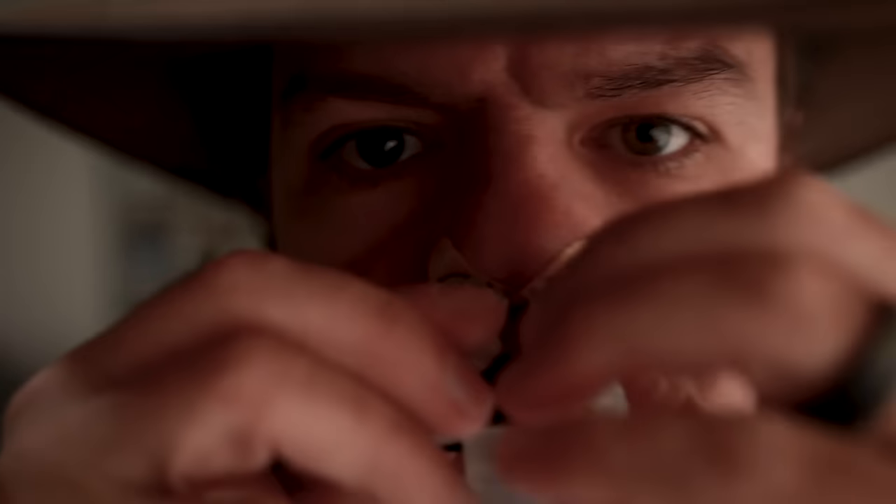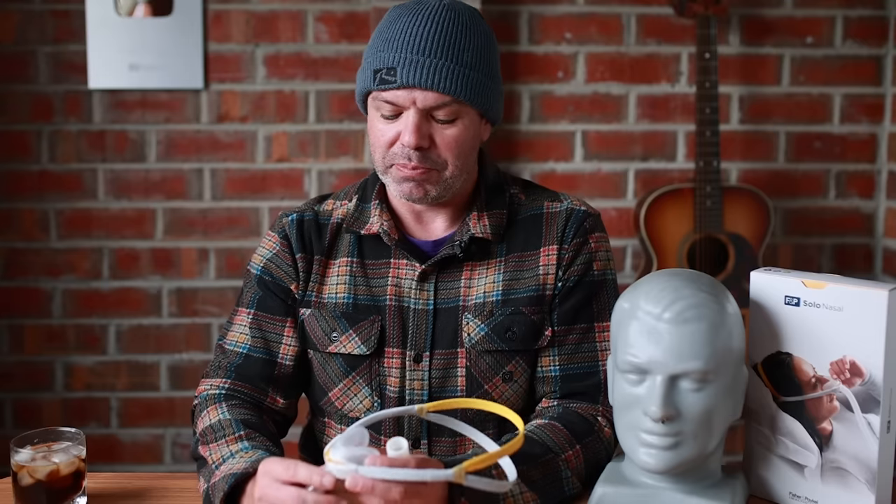The Bleep Eclipse is also an amazing mask, but because it's only a small company behind it — not a big company like ResMed or Philips or Fisher and Paykel — it probably doesn't get as much traction, but check that mask out as well. I think this one is going to really throw a spanner in the works for ResMed and some of the other companies, and it will take a lot of market share from them.